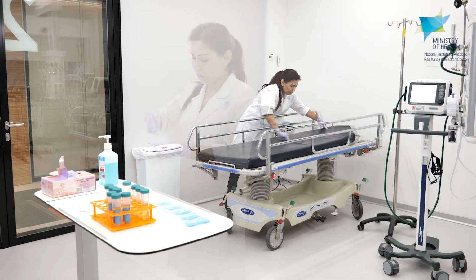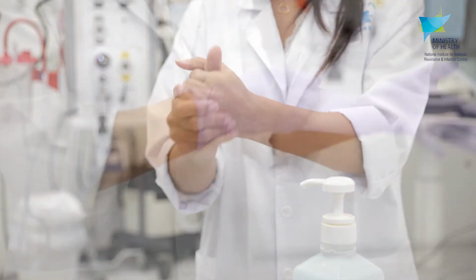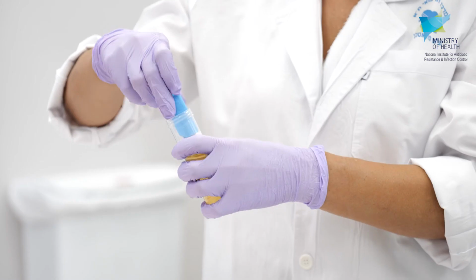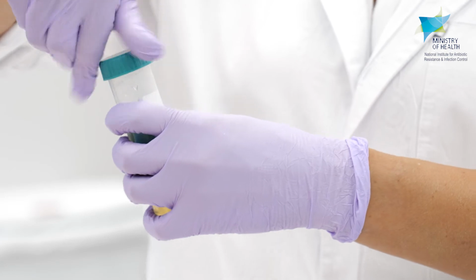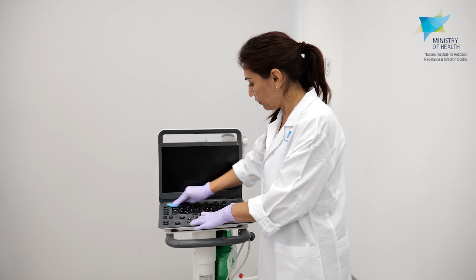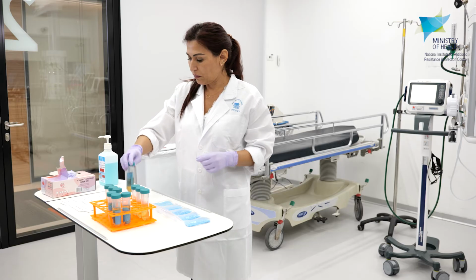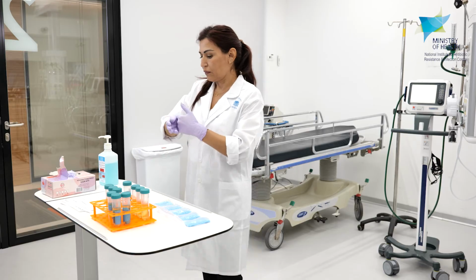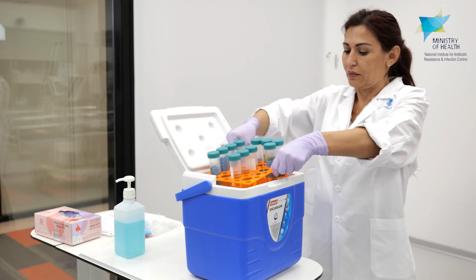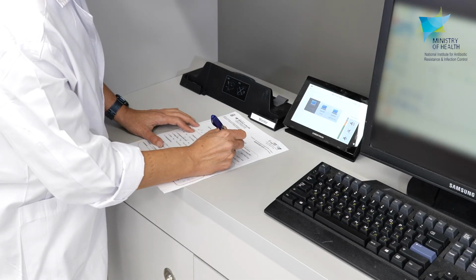We will use a separate sponge swab and test tube for each item we sample. We will focus on high-touch surfaces. Avoid touching the specimens. When the purpose of the sampling is to find the source of an outbreak or to check whether patient care is being performed according to the principles of infection prevention, we should sample shared equipment and carts. It is important to indicate the source of each sample on the lab forms.